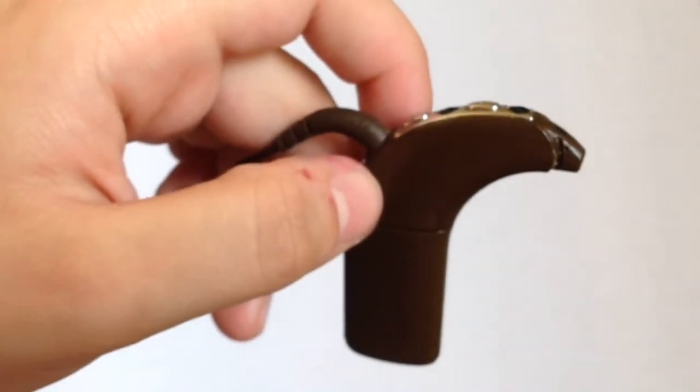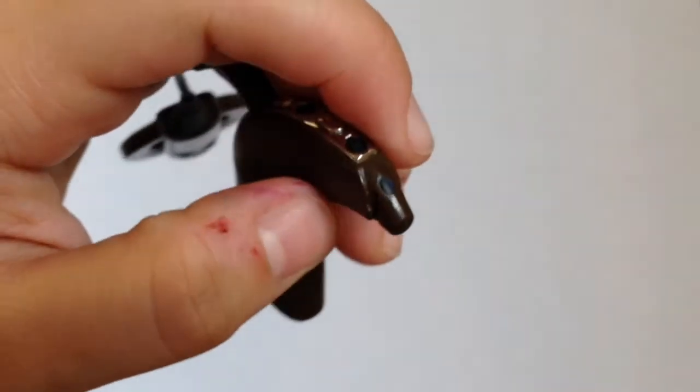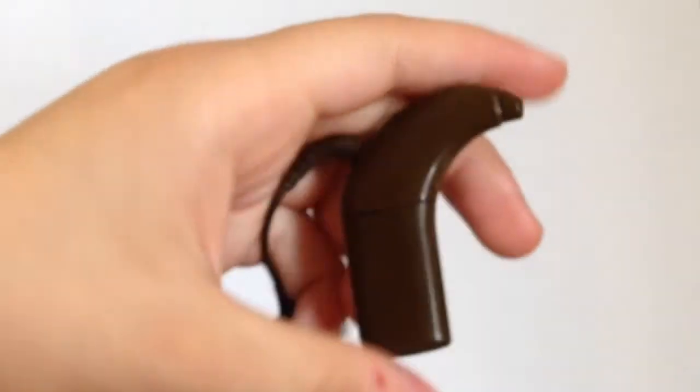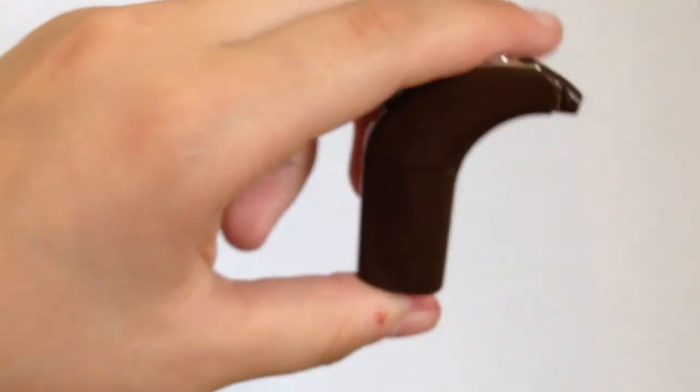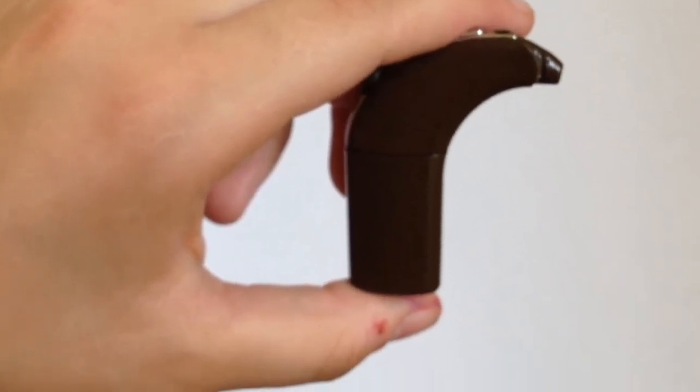But it might be a bit safer. I'm not sure actually now that I'm thinking about it. But that's the way actually if you watch Cochlear's videos. Cochlear themselves, they have a video on how to take it off. And that's how they take it off. So I assume it's probably safer than the way I showed you before.